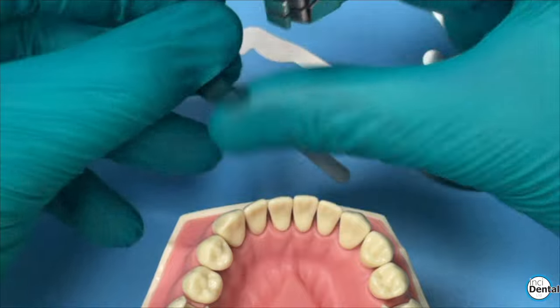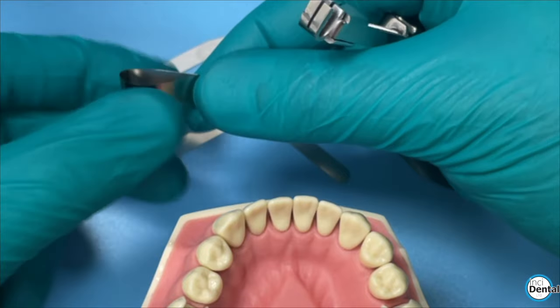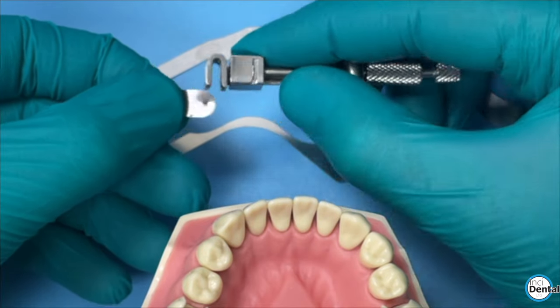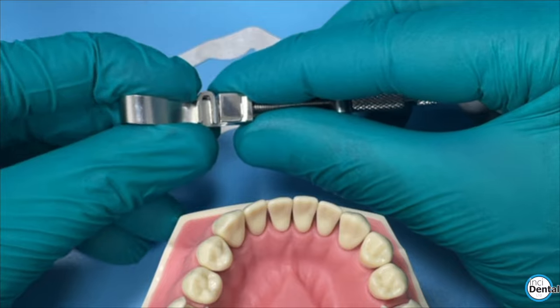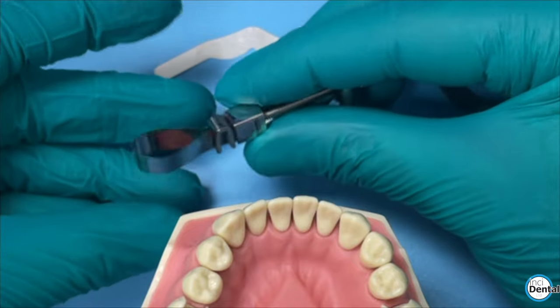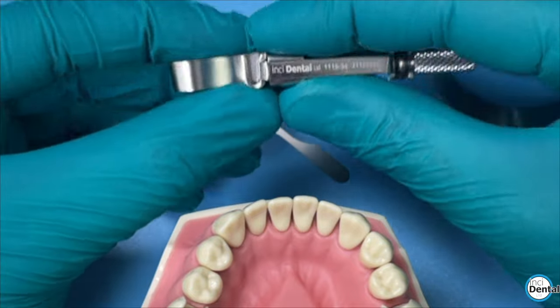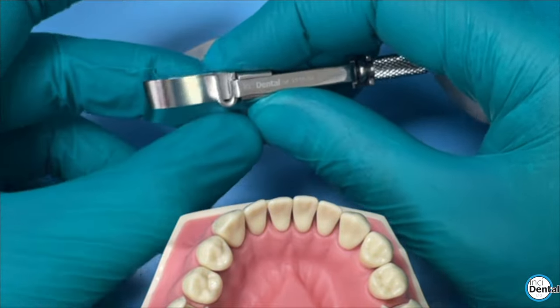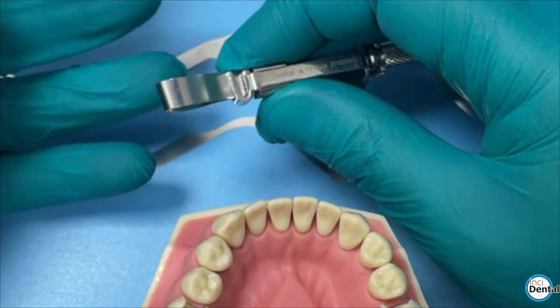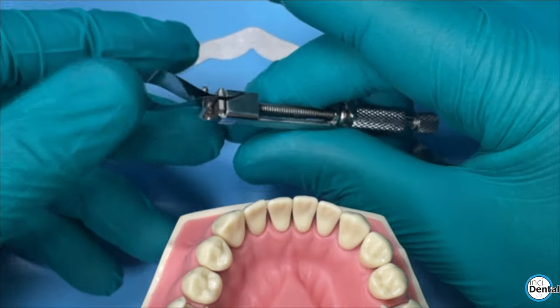Let's talk through how to load it. I'm going to fold this band over, and we've got to think about where we want the cervical portion to be. When I was taught, I was taught to put it in this way round into the U - that's the traditional way. But over the last number of years, I've found exclusively that when you go this way for deep margins, it becomes quite unstable. If we turn it around and put the cervical to the bottom of the U, that gives us something to stabilize against. The band is much more steady and easier to tighten for deep margins. So I prefer to have the U facing up, but you can get it to work either way.